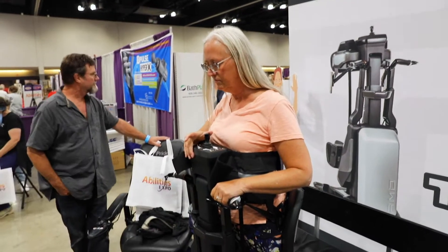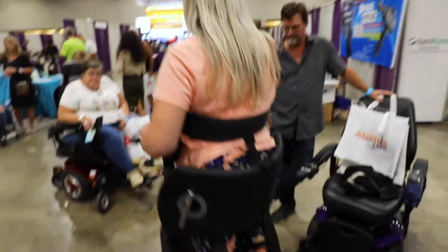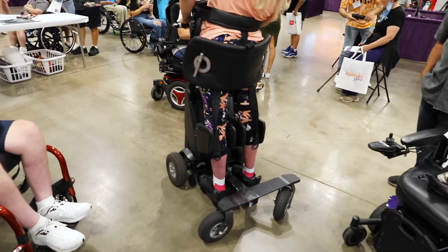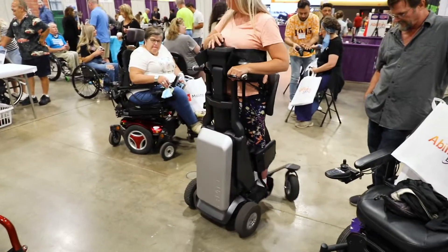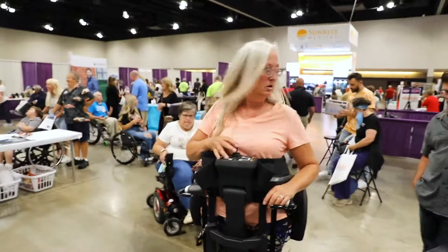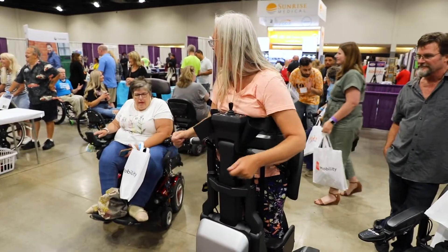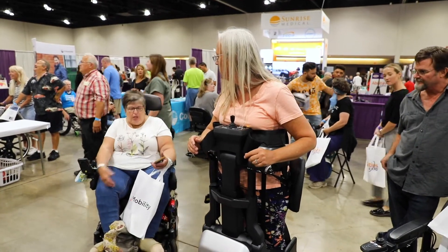The harder you push it, the faster you'll go. Go ahead and get a feel for the outdoor wheels. You are stood up, and it ends just like our chairs — it basically spins on its back wheels. From here you can think about it — cutting vegetables at a counter. You can't get the full same thing here because it's right... yeah.